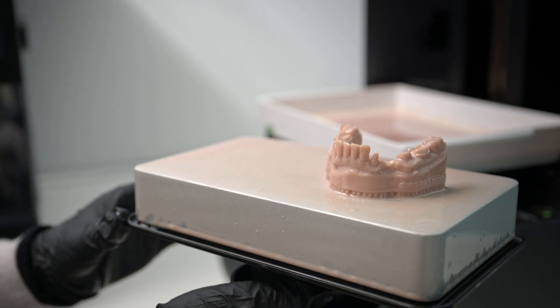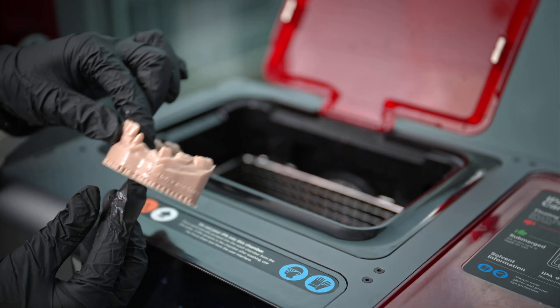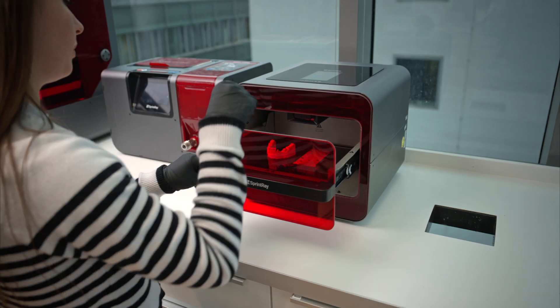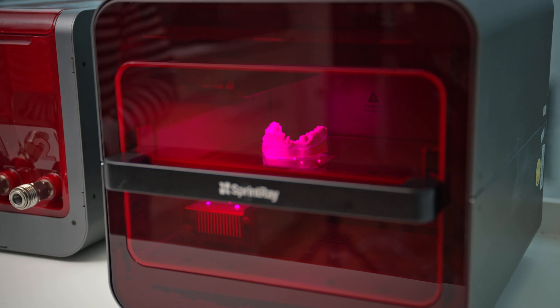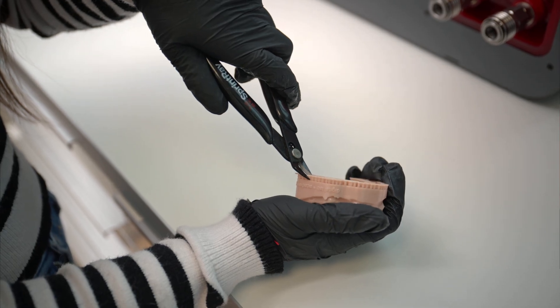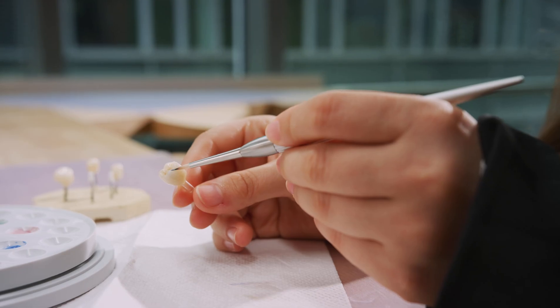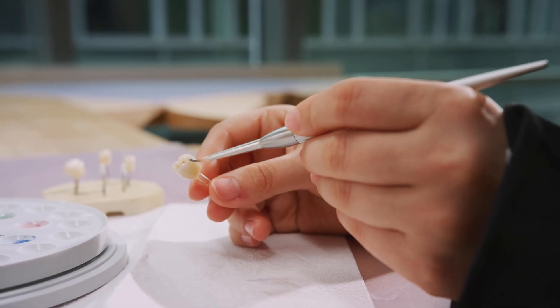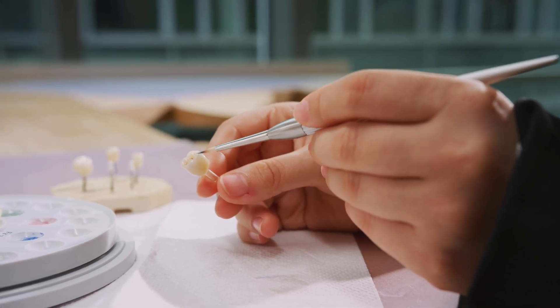After printing, we wash the object in isopropyl alcohol and cure it under UV light. After curing, the technician finishes the printed appliance by removing the support structures, fitting, and polishing. Staining and glazing give a unique finish to the provisional or final restoration.